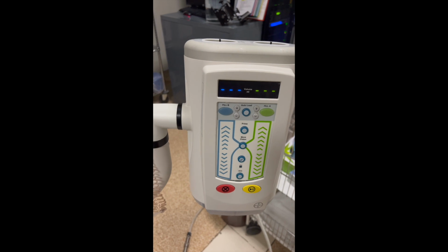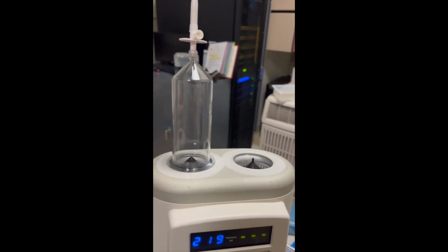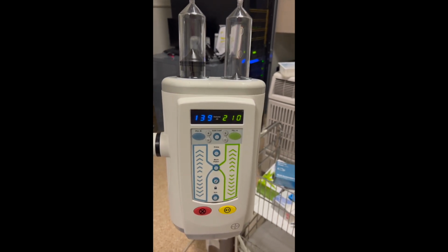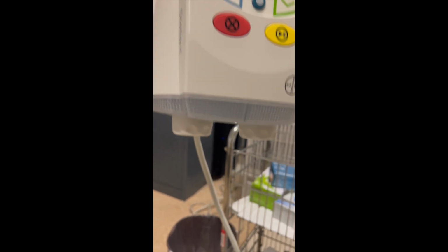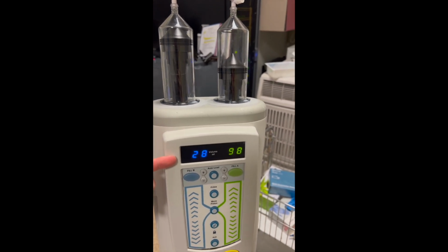Here's our injector, so whenever you are popping it on like this, all you have to do is just press down and turn. And once you go ahead and do that, it'll start pushing that syringe up. Down here at the bottom, these little knobs are going to be turning. And then once it gets all the way up to the top, it's going to say 0. And that's when you can put on your saline.